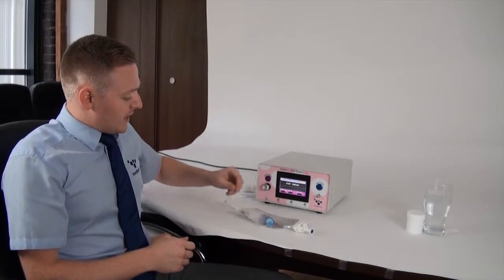It will do a correction factor which means that the monitor needs to do a little bit more guessing but should give you a relatively similar result once the correction has been applied.